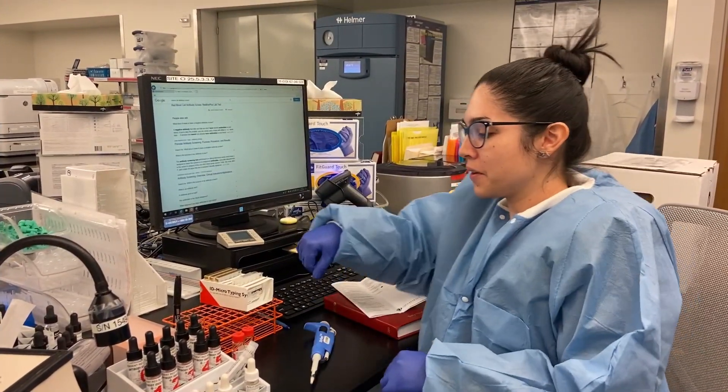You did a really good video showing us how to do an antibody test — I really liked that video, you did such a good job on it. Thank you! Okay, so now we're going to show you that video.